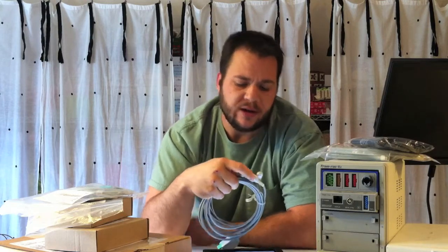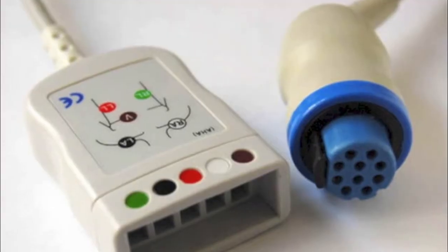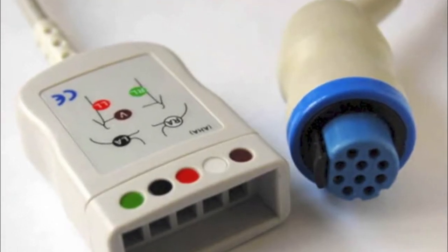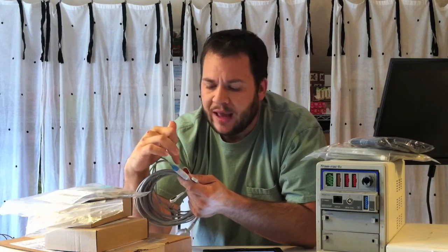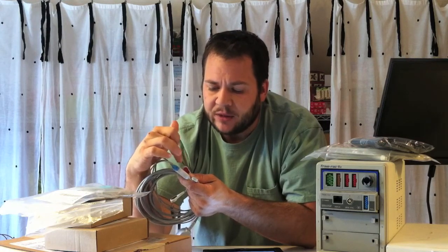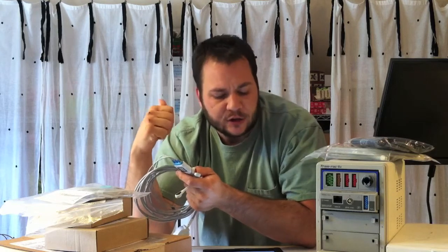There's also a visual indication on your actual sensor, on your lead. You'll notice that on the yoke, there's a picture of a patient torso that has a circle or square with a color and an inscription. In this particular case, we have white for RA, black for LA, and red for LL — and those show exactly where on the patient you would position those leads. So you've got a color code, an inscription, and a visual indication.